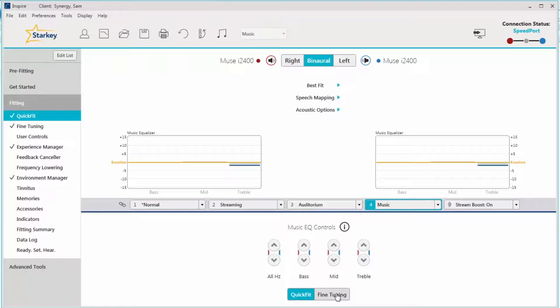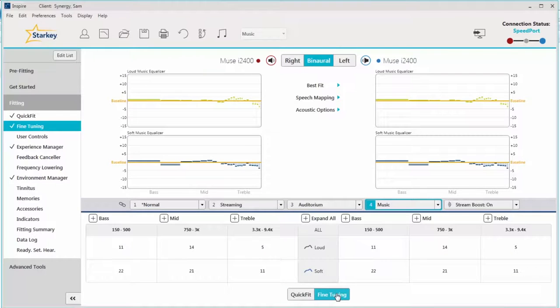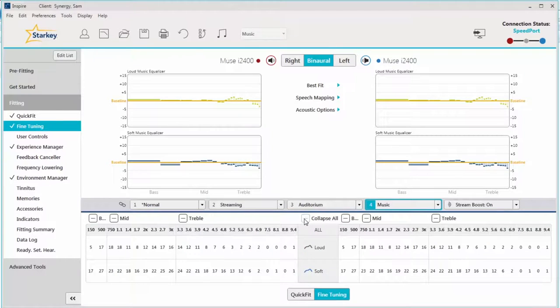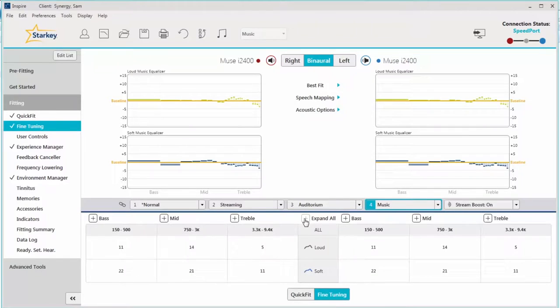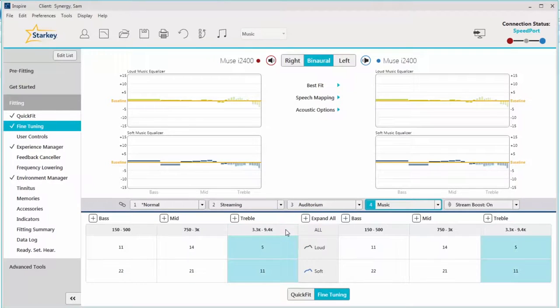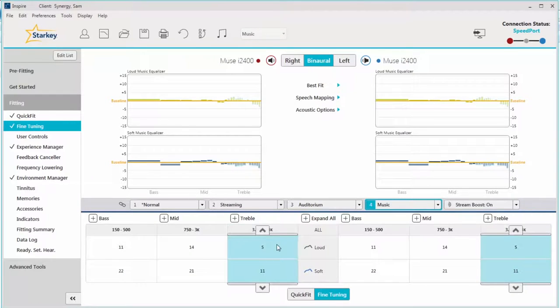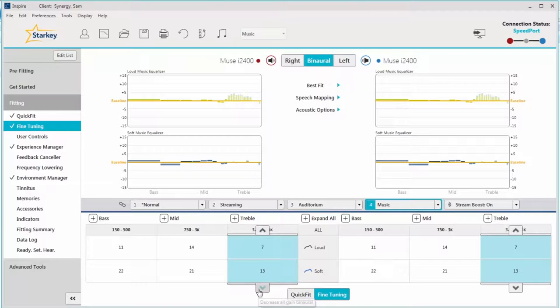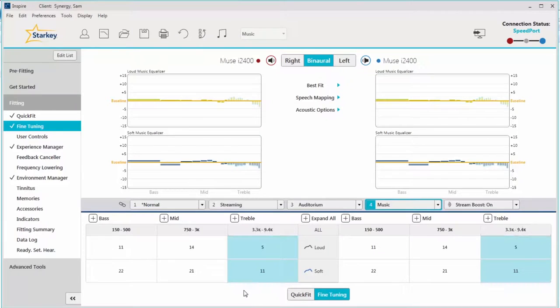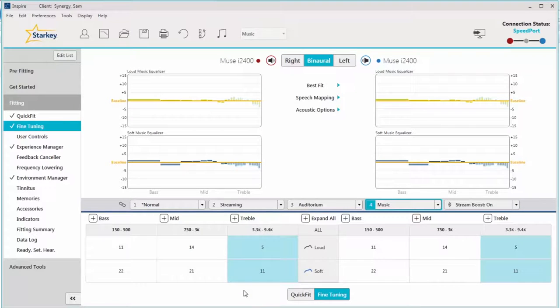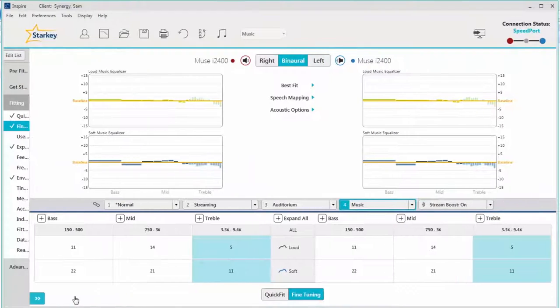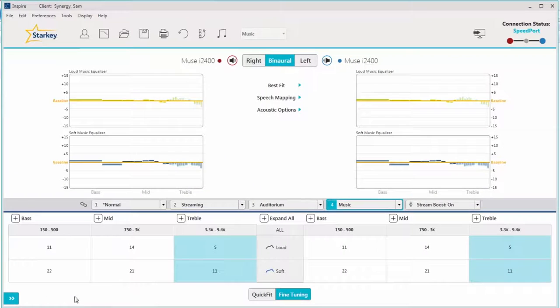The Fine Tuning screen allows for adjustments to both soft and loud music signals along with the ability to access individual channels and bands. Highlight the frequency region or individual frequency requiring adjustment and use the up or down arrows to increase or decrease the response as needed. Both screens include friendly equalizer-type graphics and the expansion arrow can be used to collapse the left navigation bar and enable full screen viewing of all adjustments.